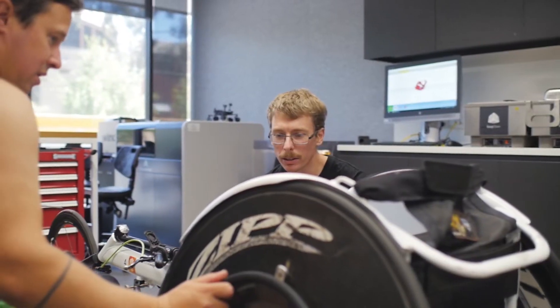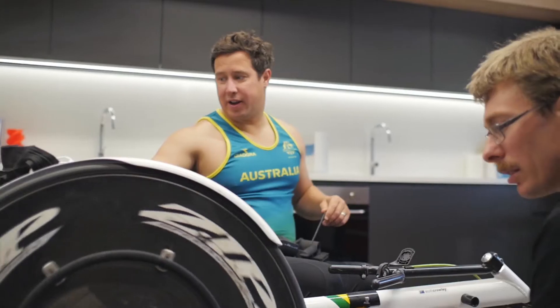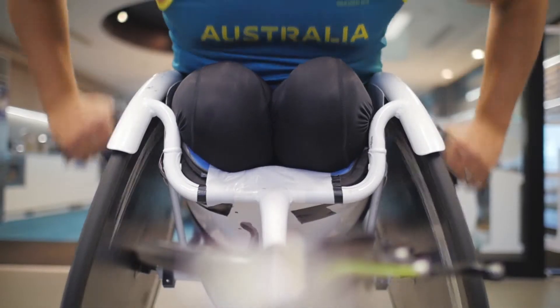The importance of these gloves — obviously when you're racing at a level like the Commonwealth Games or World Championships, it's time critical. Every second counts and it's flat out the whole time, so to have a glove that I know is reliable, that is strong, and that's easy to put on made a massive difference.